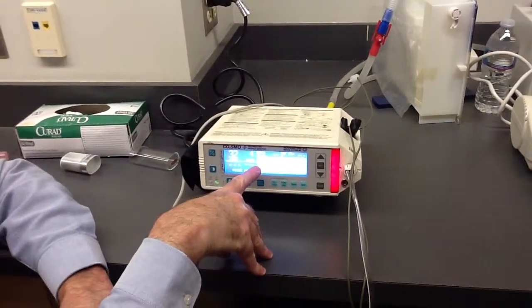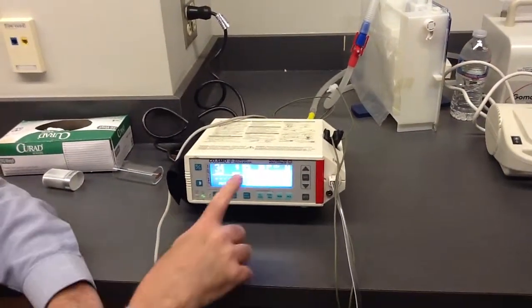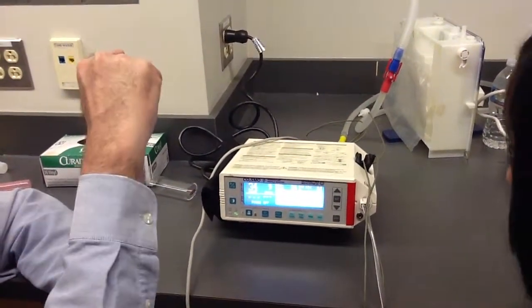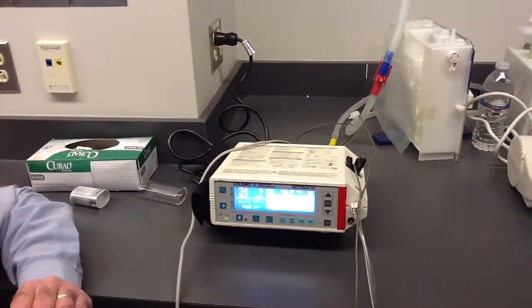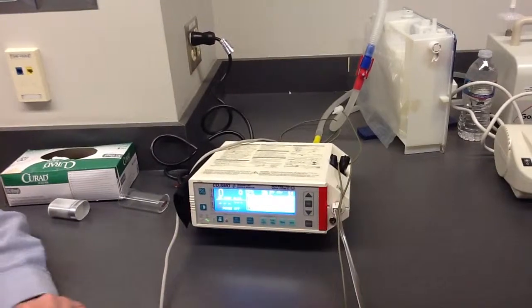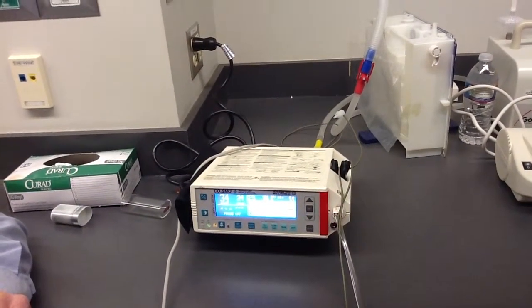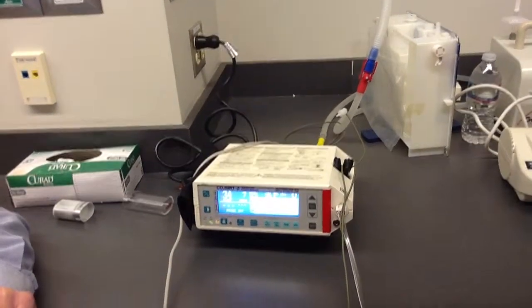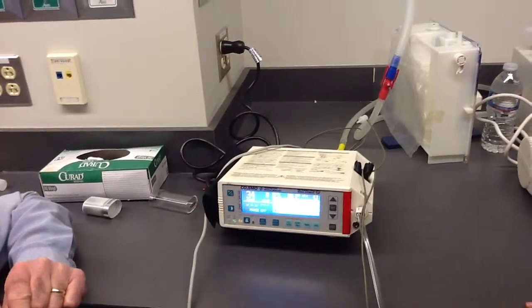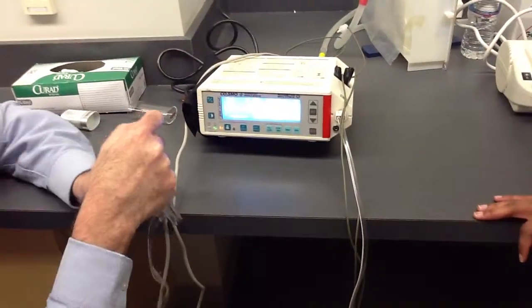Okay, this is the waveform. What you're going to look at is: when I take a breath in, this bar goes down to zero, and then when I exhale it goes up. It looks almost like a square wave — on a ventilator it's that pattern: up, across, and down. So let's measure the end-tidal — the ending portion of CO2 — which will be about 34.